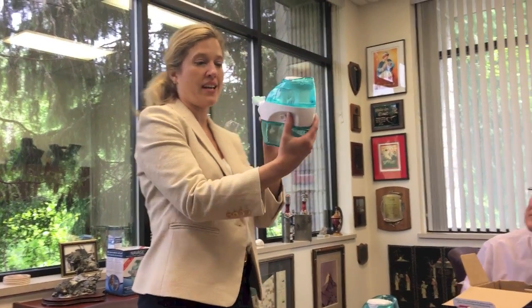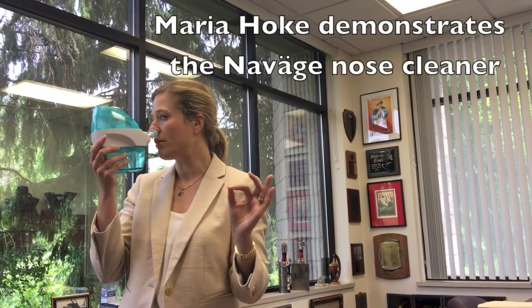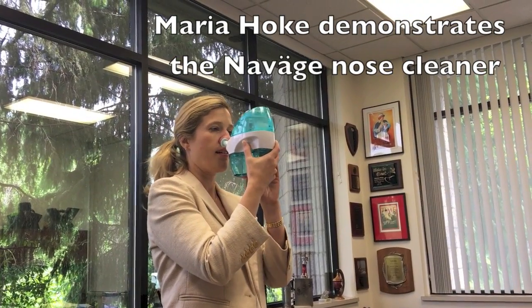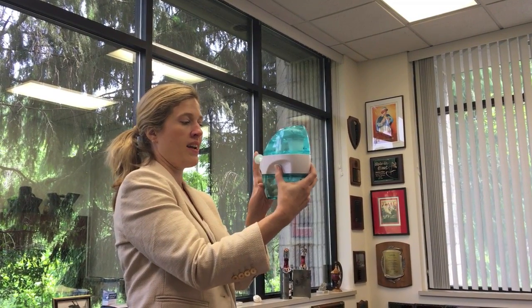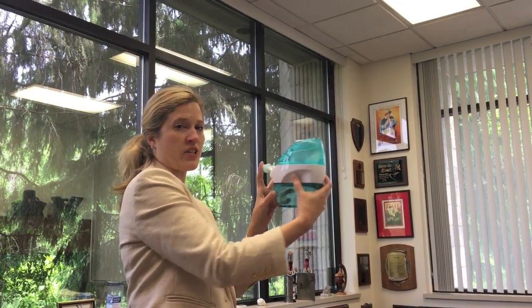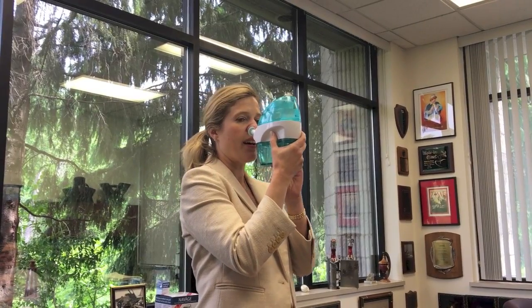It's just a matter of seating the nose pillows in your nose, making sure that they're in there and that they're comfortable. I'm not pressing them in really hard. Now when I'm ready, this is a two-stage switch, so when I press it in just partway I can hear the suction and I can feel the suction coming out of the back of my nose.